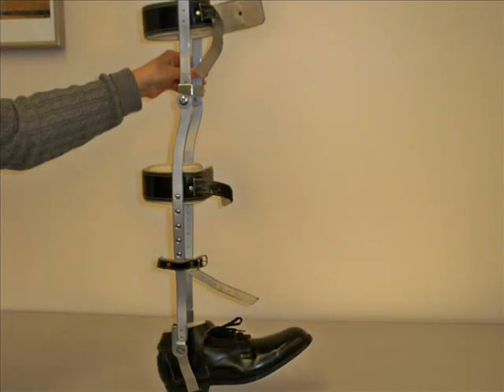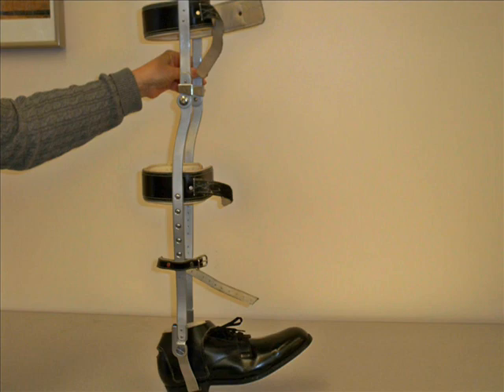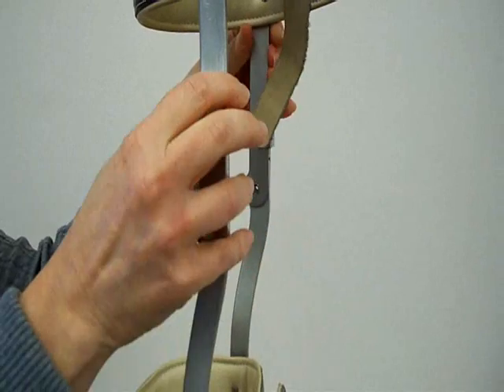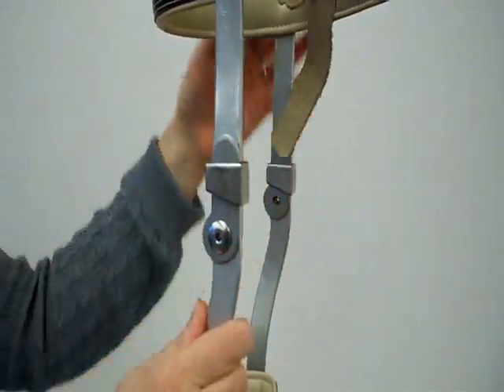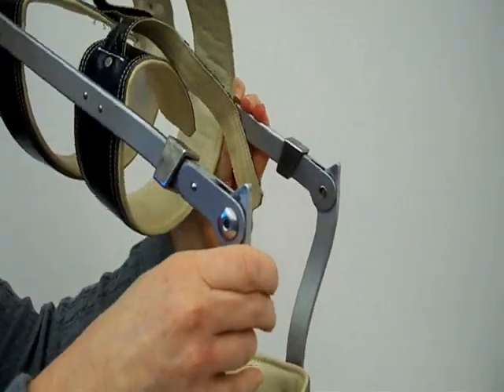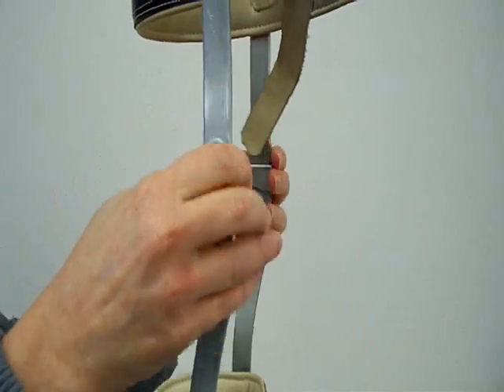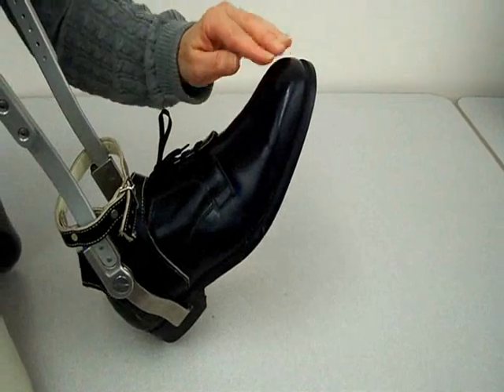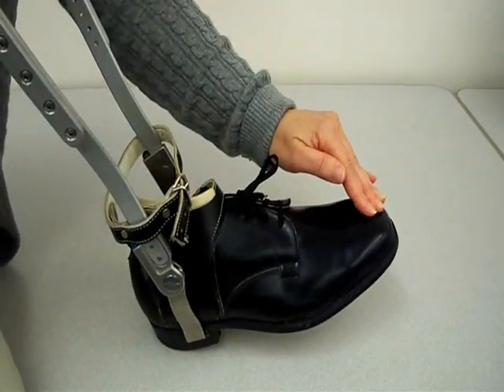This is a traditional KAFO that has metal uprights attached to the shoe with a split stirrup. It has leather cuffs around the leg and thigh, dorsiflexion assist, plantarflexion stop, and knee locks. This video shows how the knee joint is unlocked before the person sits down and locked again after the person stands. The person who uses this orthosis is expected to walk with the knee locked in extension. This orthosis also has dorsiflexion assist and plantarflexion stop.